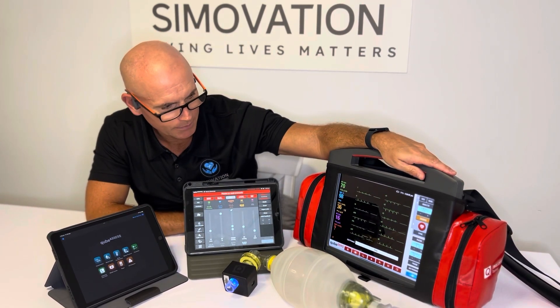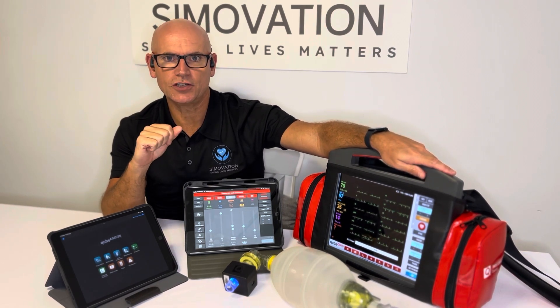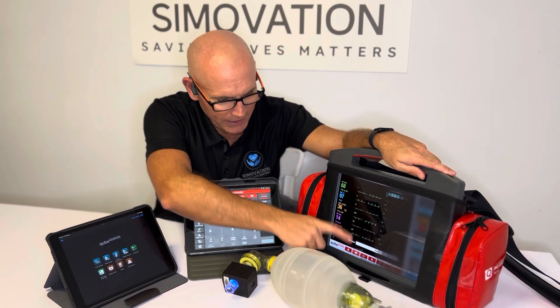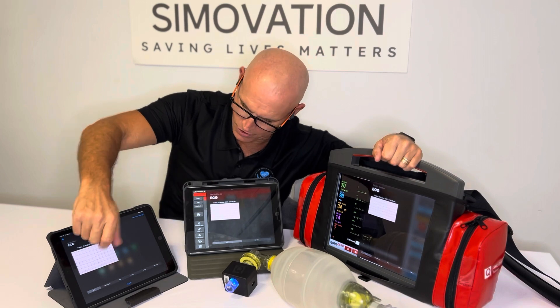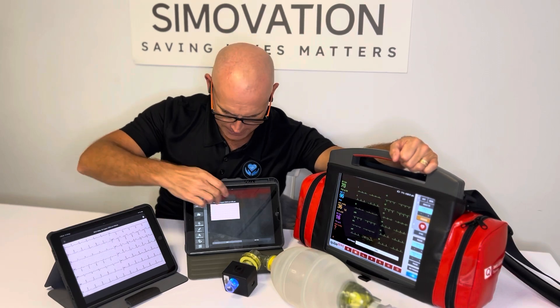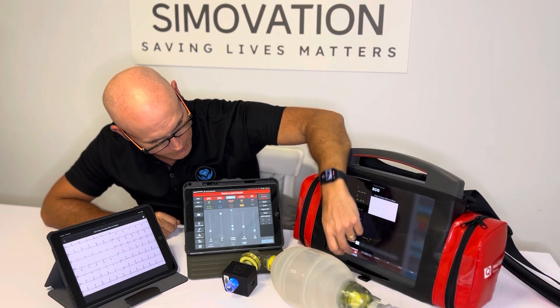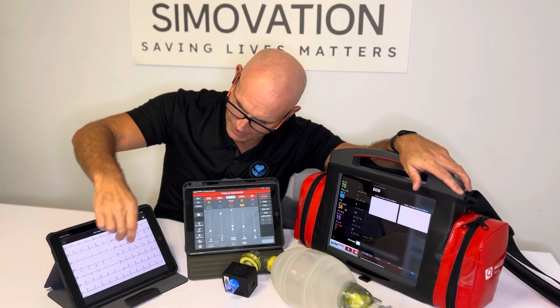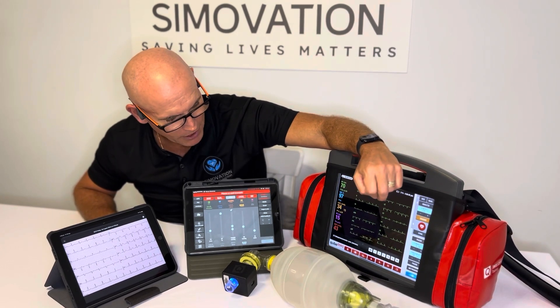Now we're getting our dynamic 12-lead. If I want to assess that 12-lead for ECG or lead changes for diagnostic purposes, I'm going to print that. When I hit print, it opens up an image here and also on the participant tablet and the instructor tablet as well. I can analyze it here and get rid of it from the instructor PC. You can never have enough access to a good 12-lead.